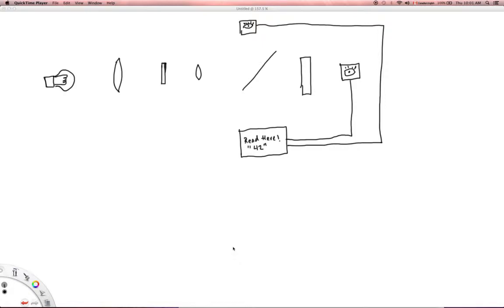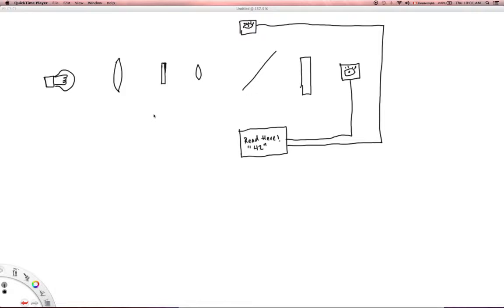All right, good day everyone. This is Chris back again with the Ancient Scholar, and now what we're doing is we are looking at the guts. This is the annotated version of looking at the guts of an arterial blood gas machine, specifically in reference to how we measure the PaO2.